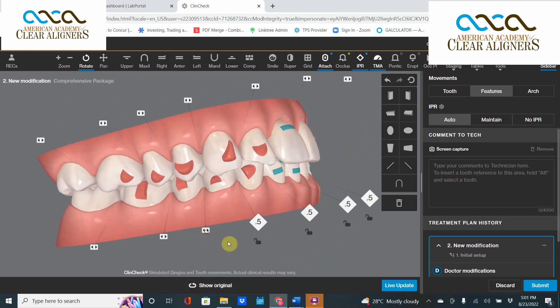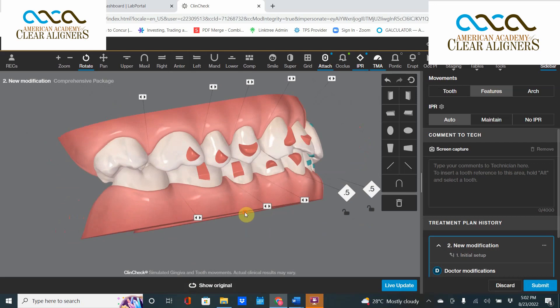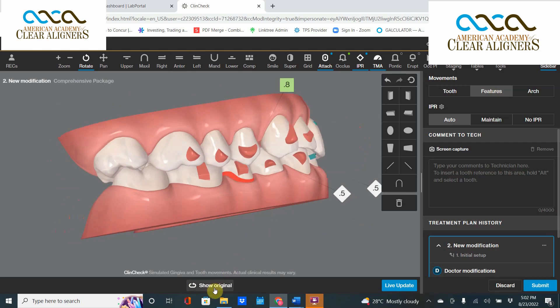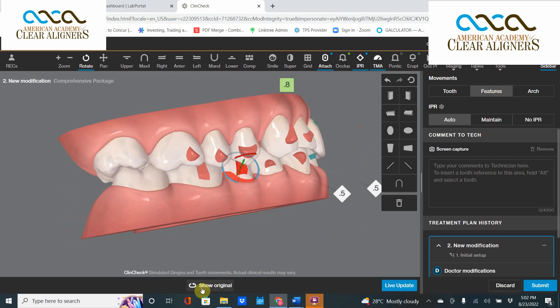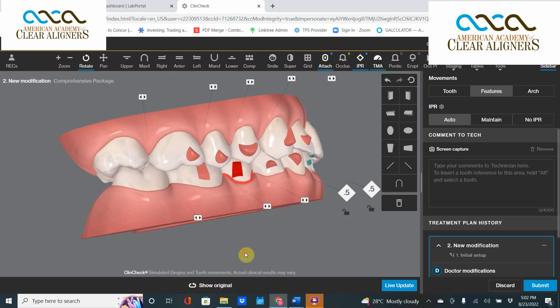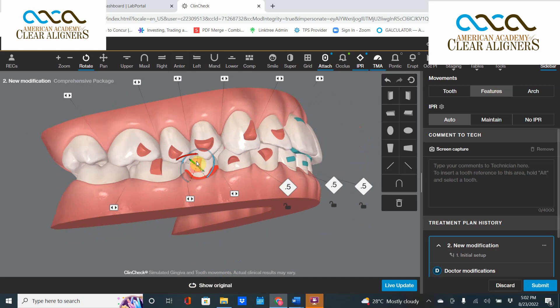This one — let's see if we can play around with it and get it out of the way. That looks better, but it's still in the way. Let's see if we can bevel it down and get it out of the way. This one might be tricky — it really looks like it's in the way. Let's bevel it down like that and see if that helps.